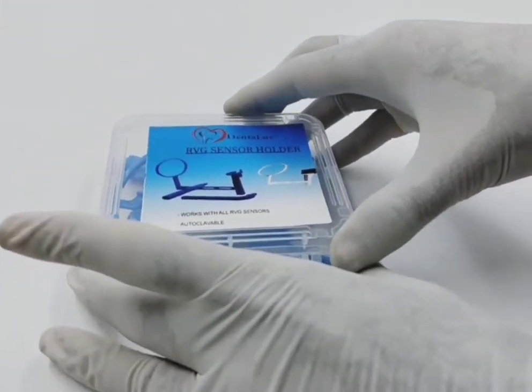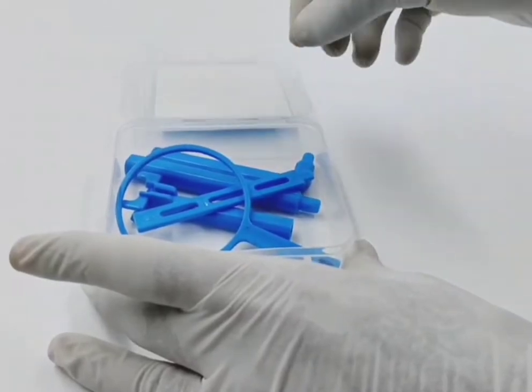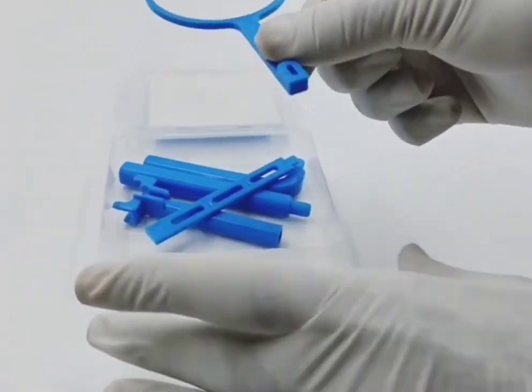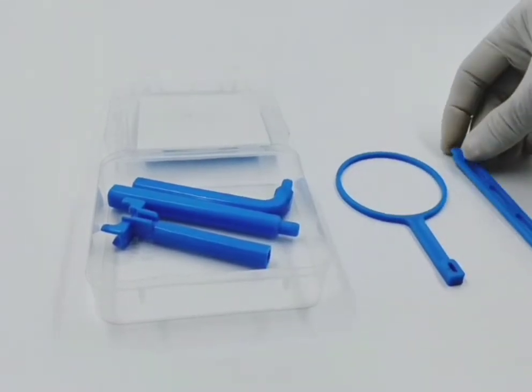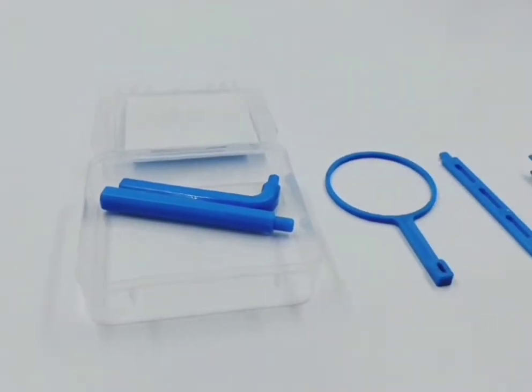It is specially designed to reduce patient's oral discomfort during the x-ray process. It is applied for traditional or smaller dental films and wireless imaging plates.